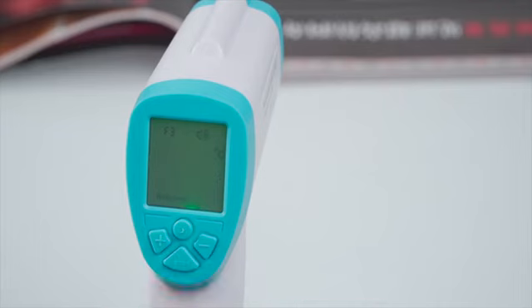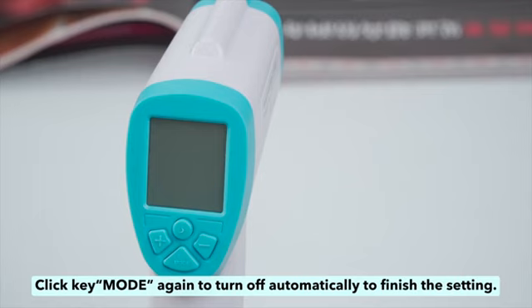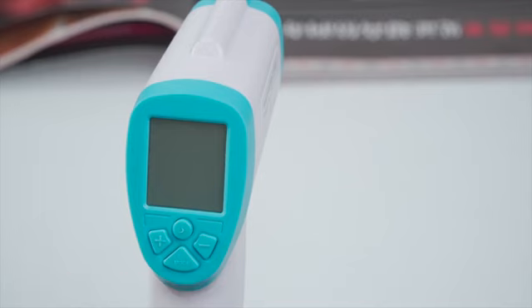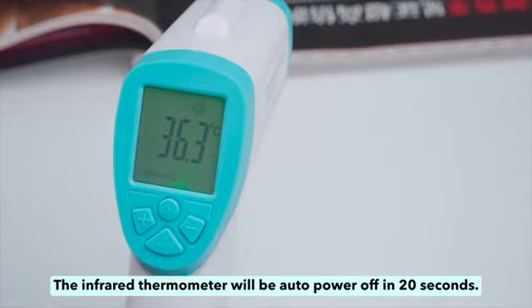Or Fahrenheit. Click key mode again to automatically finish the setting. The infrared thermometer will auto power off in 20 seconds.